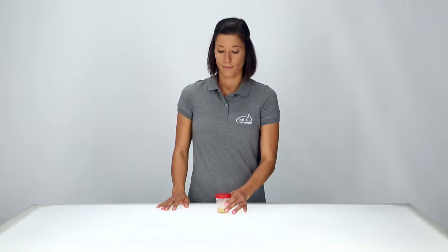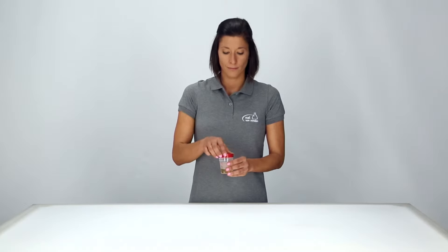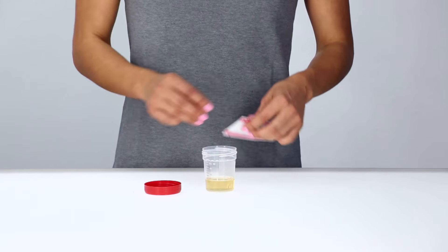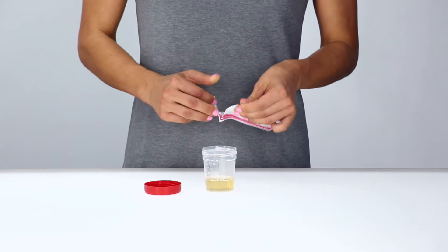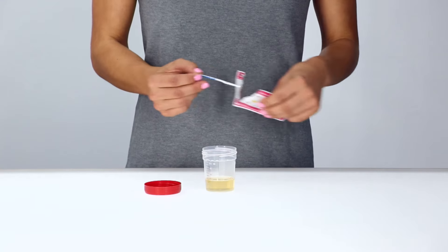Collect the urine sample in a cup. Only open the pouch immediately before performing the test and remove the test strip.